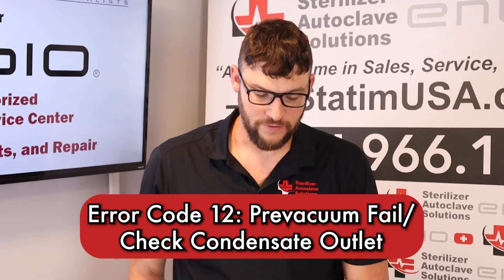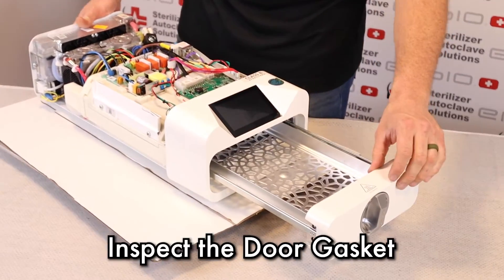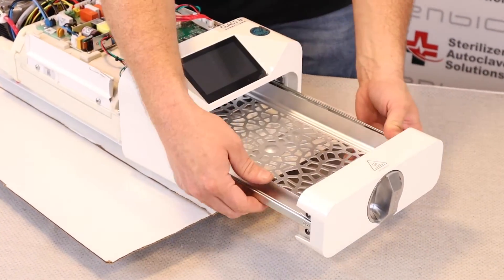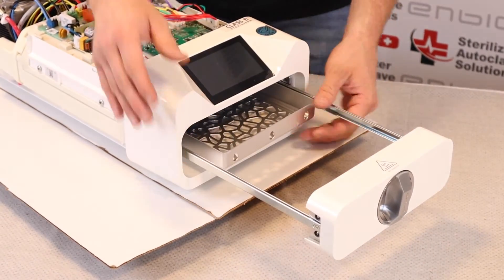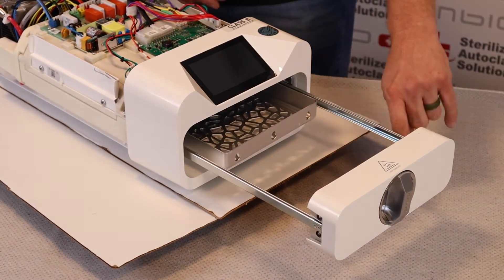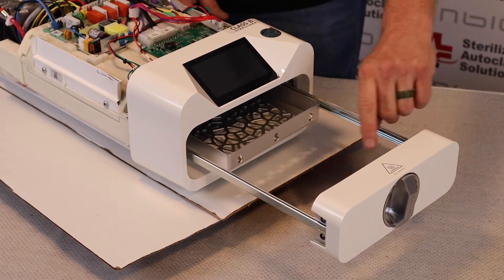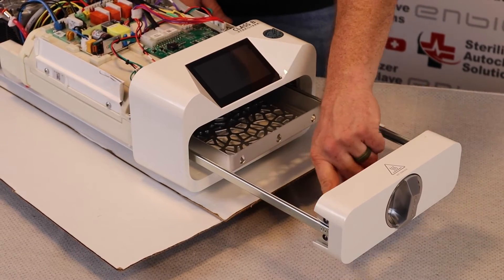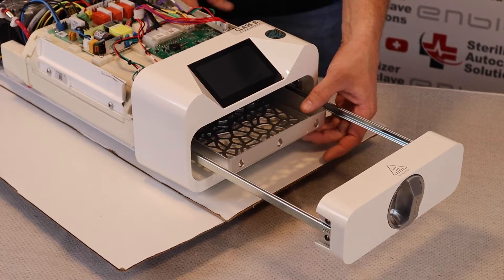At a user level, what we can check is the door gasket. We want to move the tray back and do a full inspection and cleaning of the door gasket to make sure that there is no debris or nicks in the door gasket.